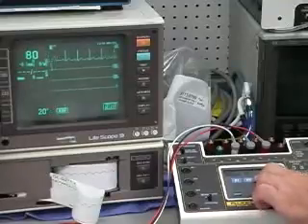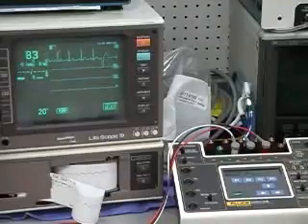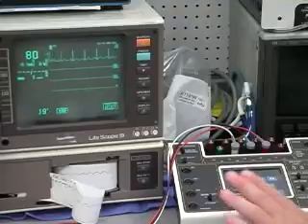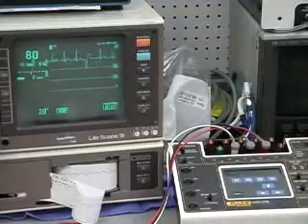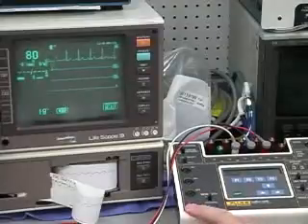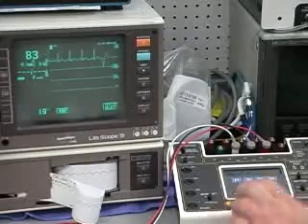And we do have fetal ECG capability, like you have the old Space Labs AMS. You can use this for testing the fetal ECG, scalp electrode type, and also the intrauterine pressure simulation. That's all within this menu.